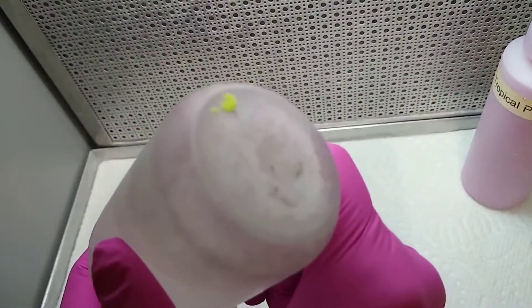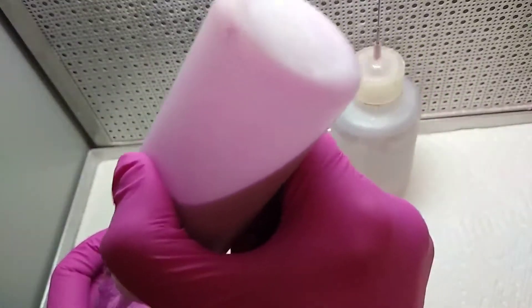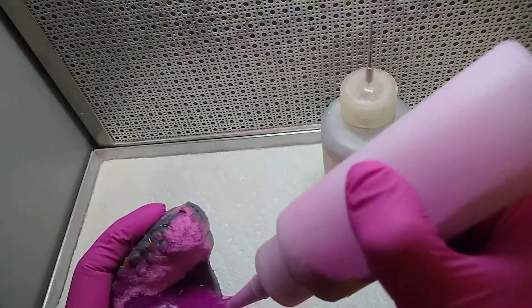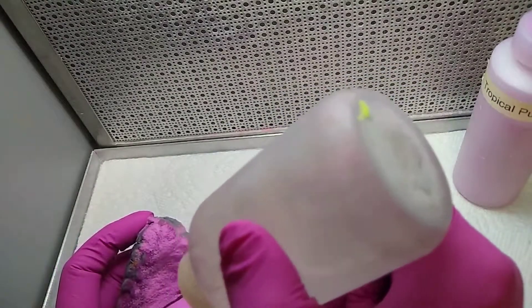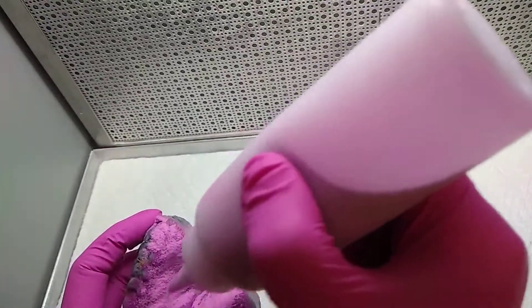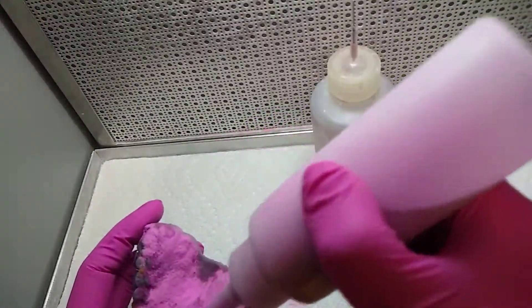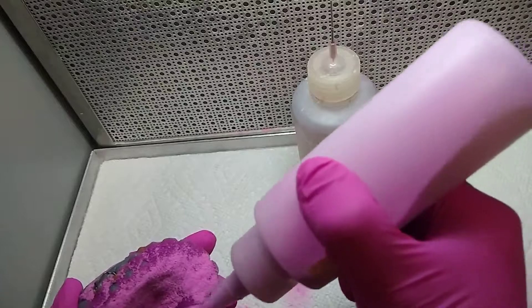When you're pouring the monomer, just be careful to wet everywhere — if not, you're going to have a dry patch on your acrylic. Always pour a little bit thicker than you need so you have room for trimming. The last layer you put is the powder; you don't want to make it runny.